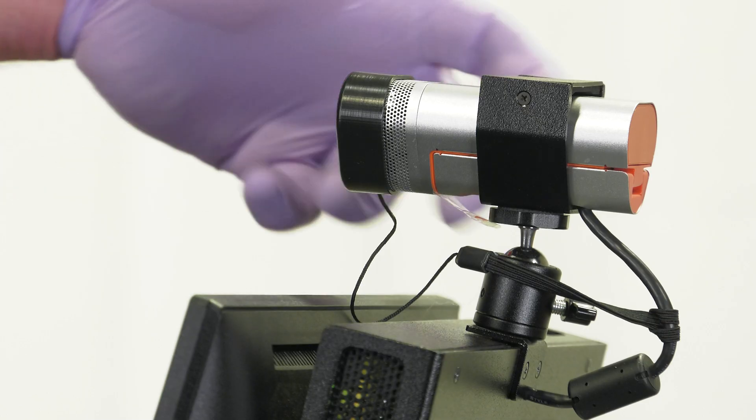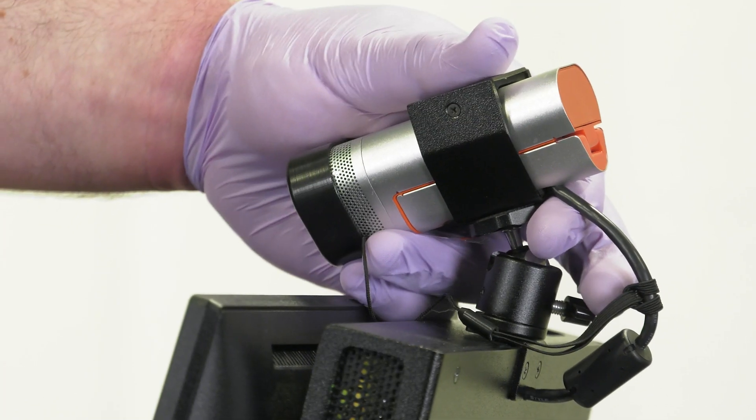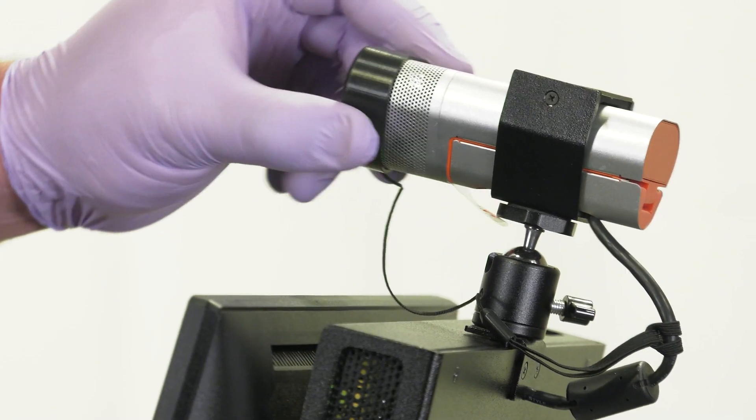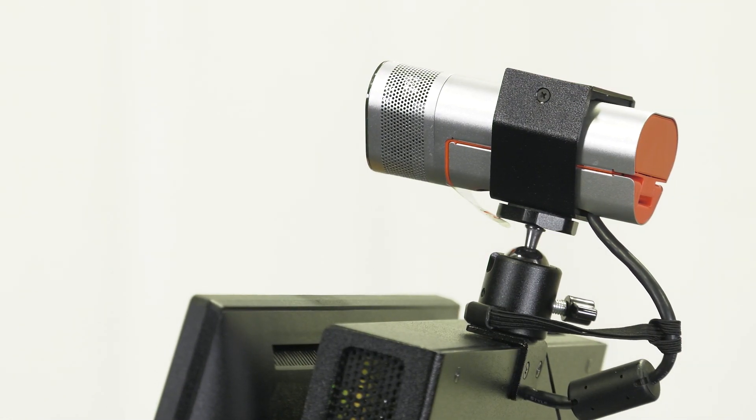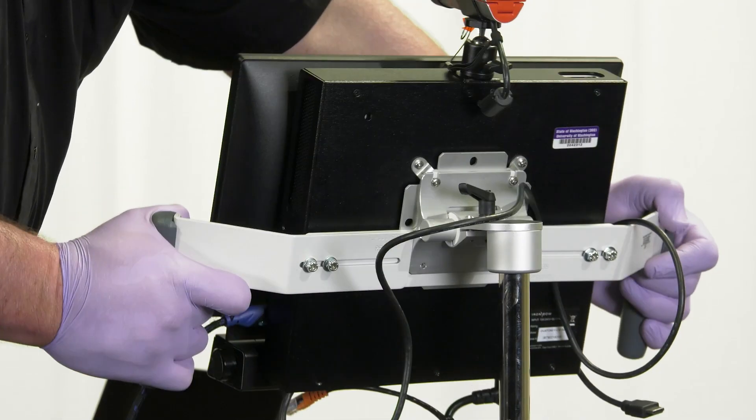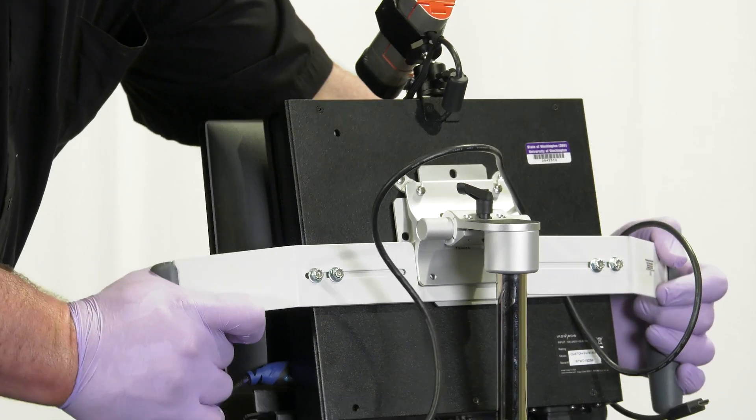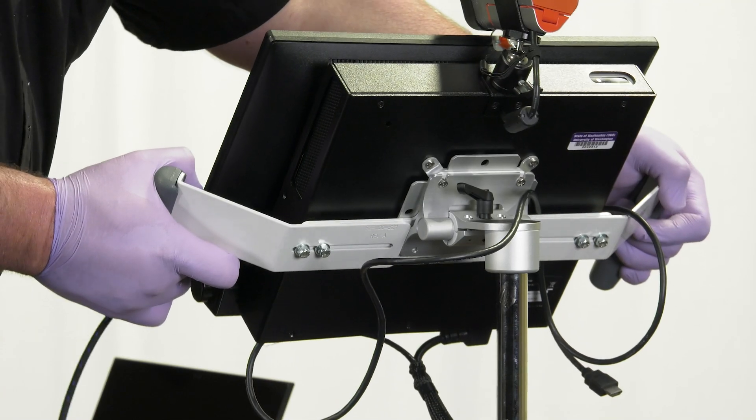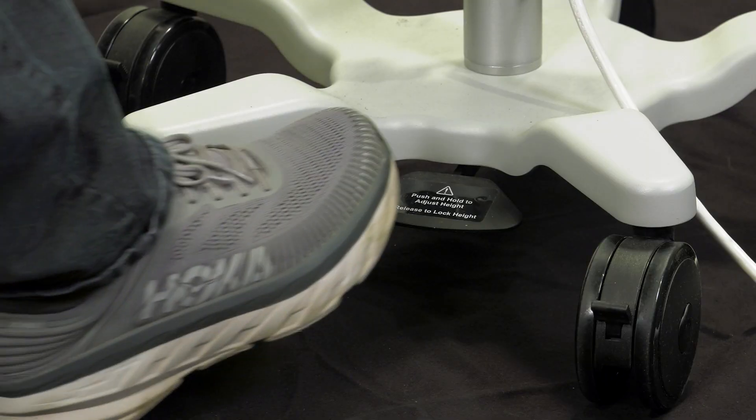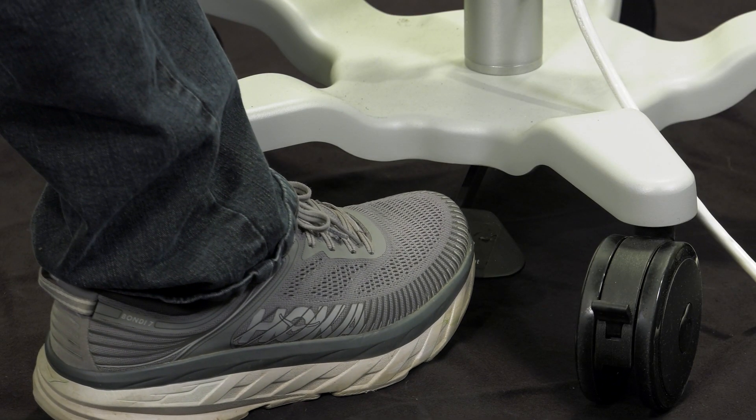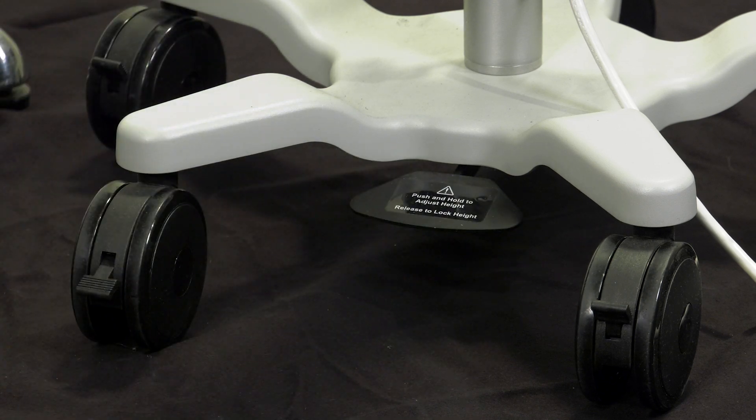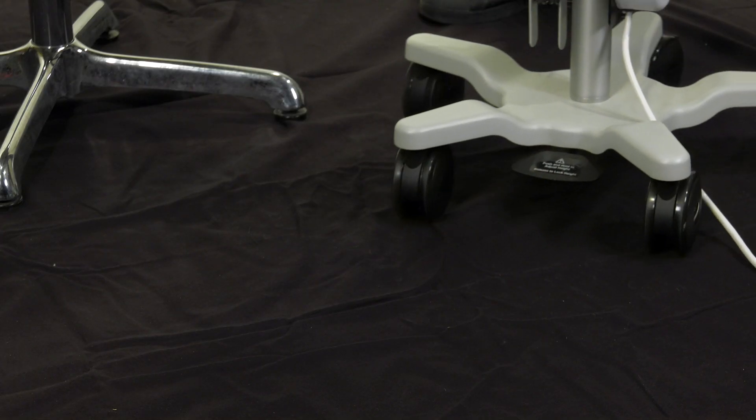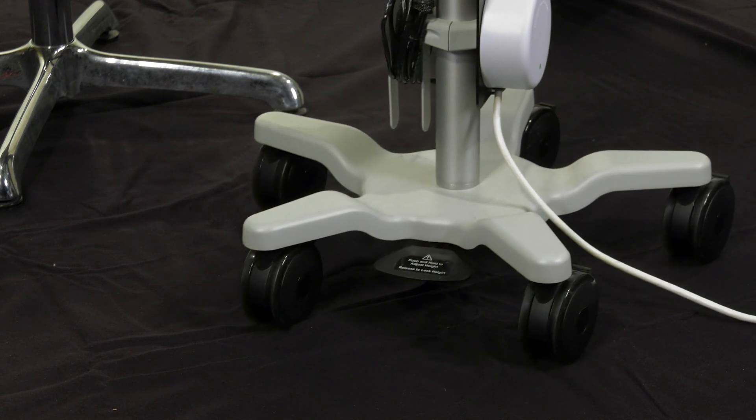On top of the screen is a video camera. It can be adjusted in any direction and has a lens cap to hide the video feed and protect the lens when not in use. The angle of the touchscreen and components can be adjusted using the tilt-adjust handles. The height can be adjusted using the pedal at the base of the cart. The cart is positioned on wheels, allowing easy portability.